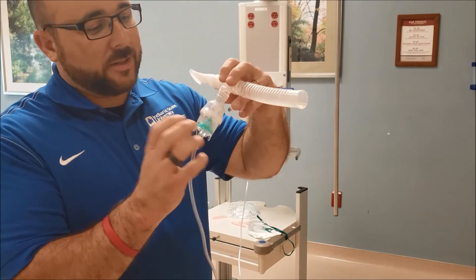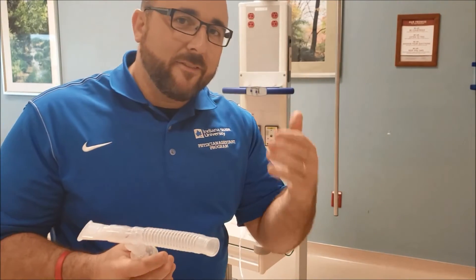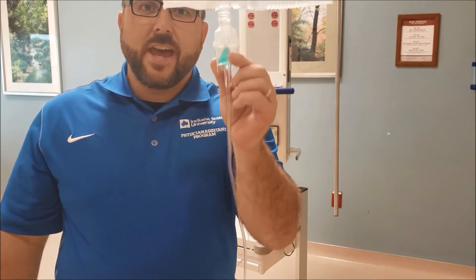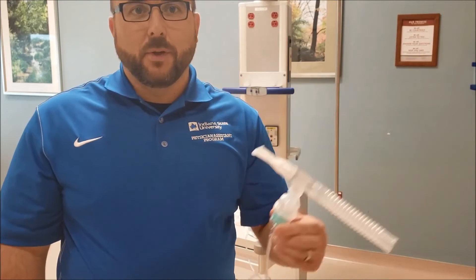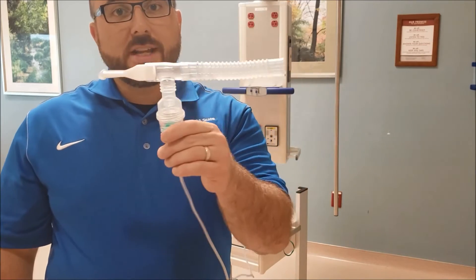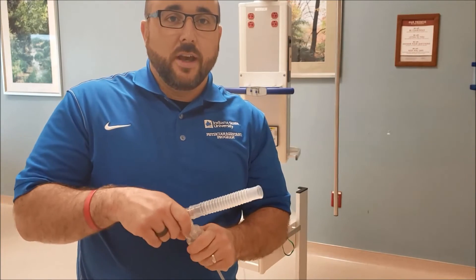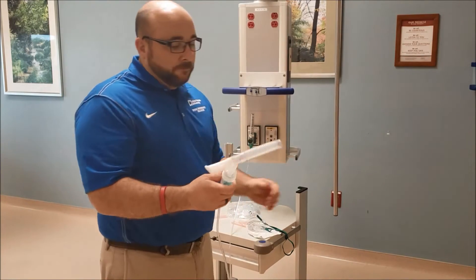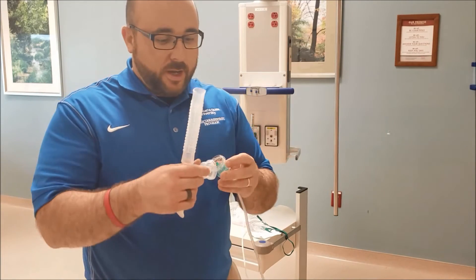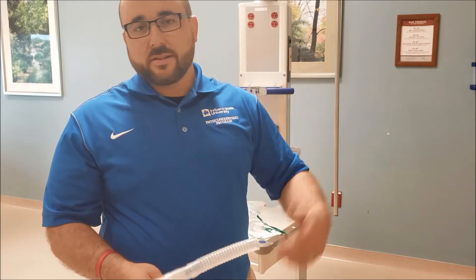When you're done with your treatment, there are some other things you need to look at. You'll see there's still some medication in there, but every time you give medication, there's going to be some that's not going to be nebulizable — it's just not going to break up the way it should. You need to make sure that is out of the nebulizer and not built into the next treatment, because it will just stay in there with more and more un-nebulizable medication. So if nothing else, dump out that remaining medication. You can shut this off, open it up, and with a gloved hand, dump it out over a trash bag — get that medication out of there so it doesn't sit and prevent the next treatment from nebulizing properly.